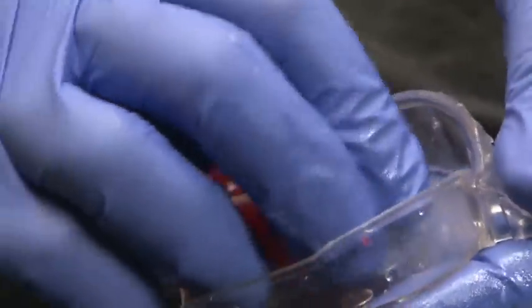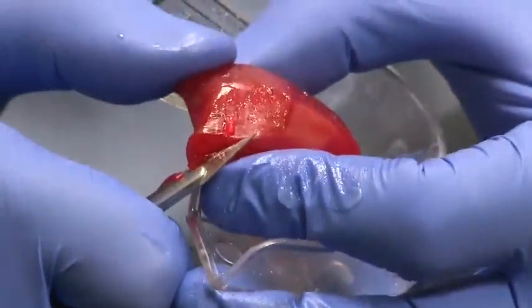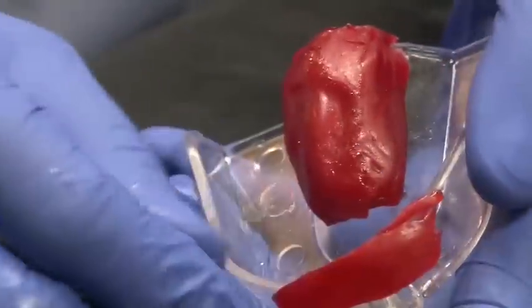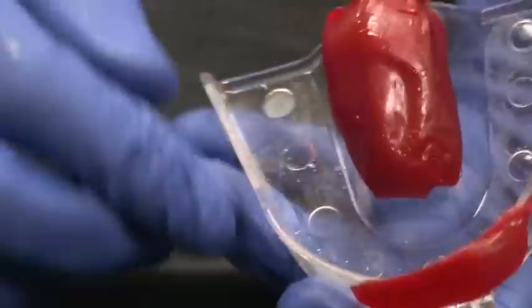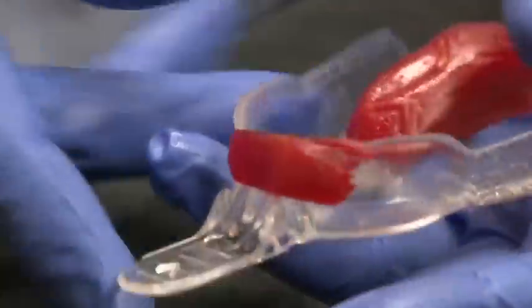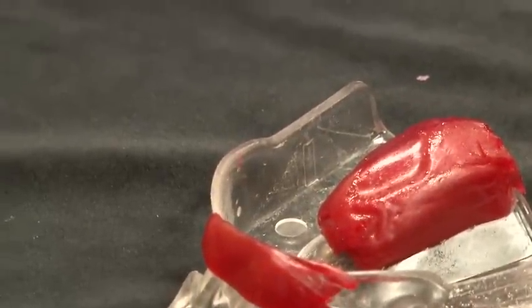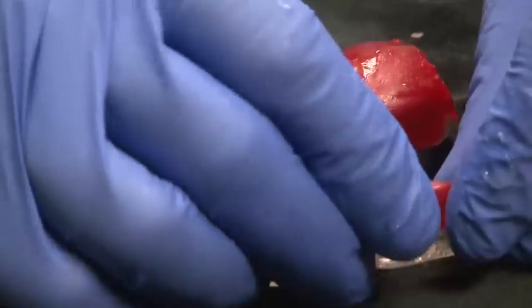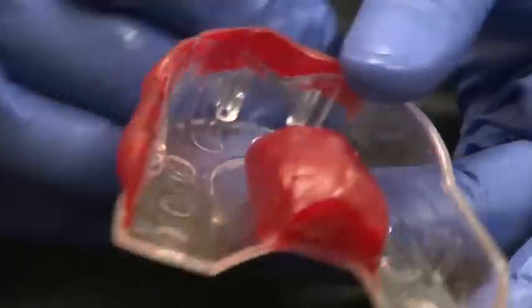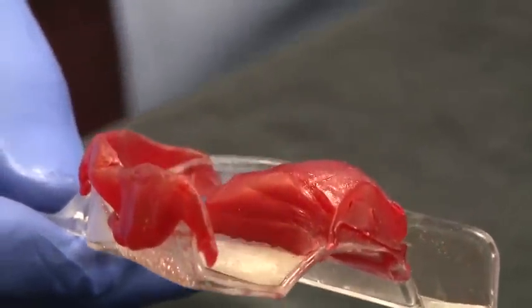That's really all that we need to do. If you decide you want to, you can take a little bit off the back as well. Sometimes you can take that extra wax and put it across the front — for example, if you're taking an impression of the two front centrals and want to make sure you capture everything going high enough. Sometimes teeth are very long, so in the area where you stretched the tray out buccally, you'd also like to lengthen it a little extra on that side. Now we've created a very customized tray to go in the mouth and work out very well.